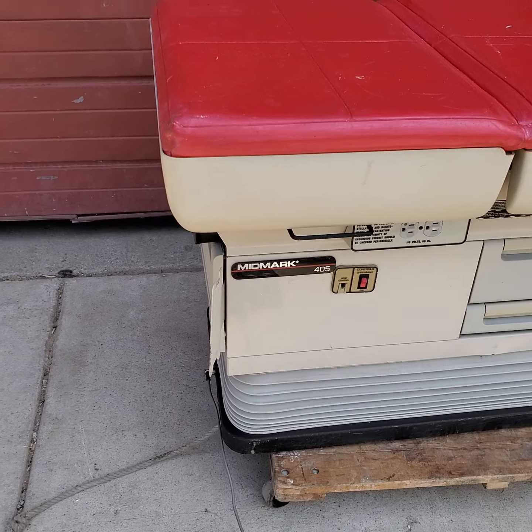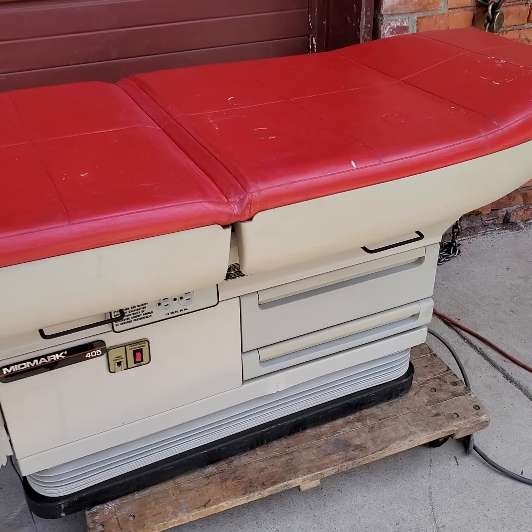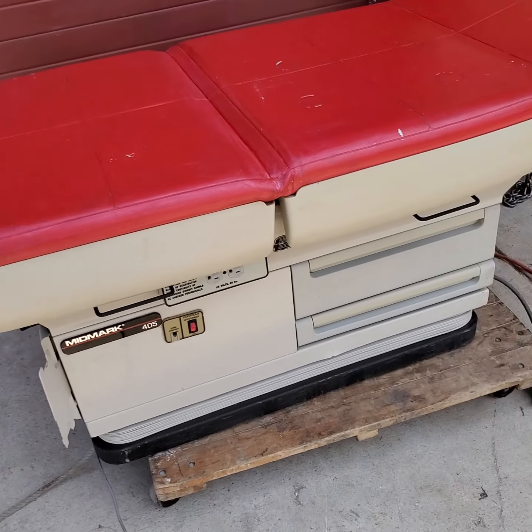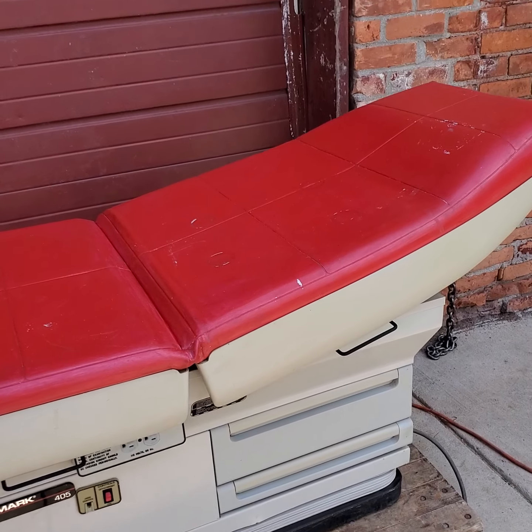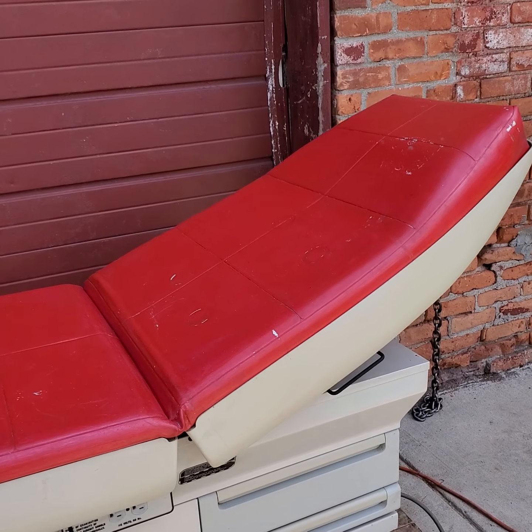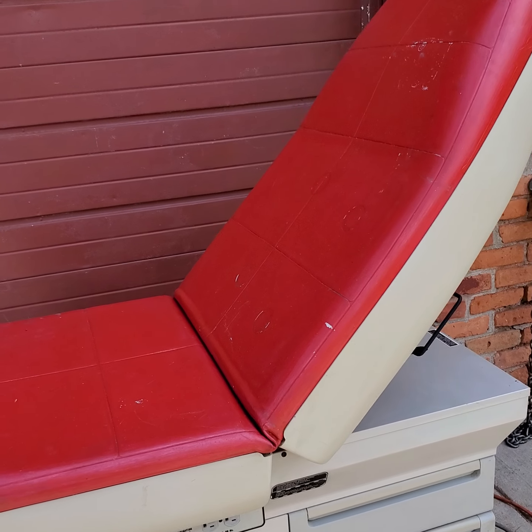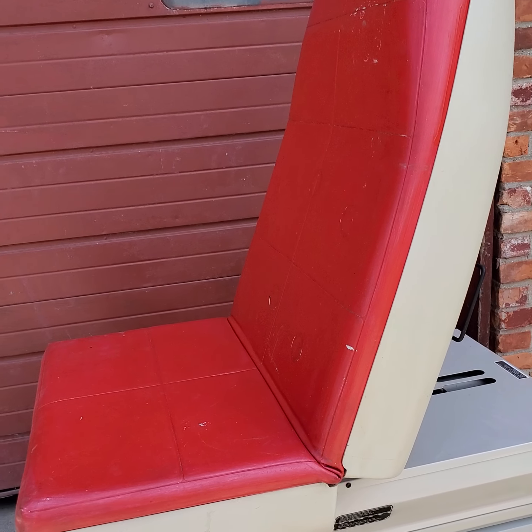Operationally, there's nothing wrong. It's really nice. Very convenient. The foot control really helps. And let's put the back up — you can see it works really, really nicely. Beautiful unit. Operational unit. Nothing wrong with it.